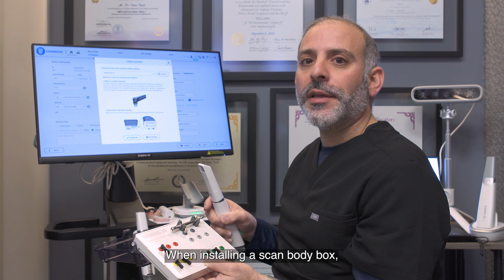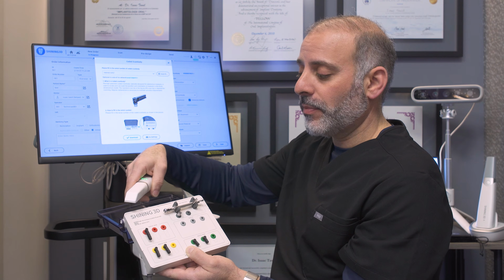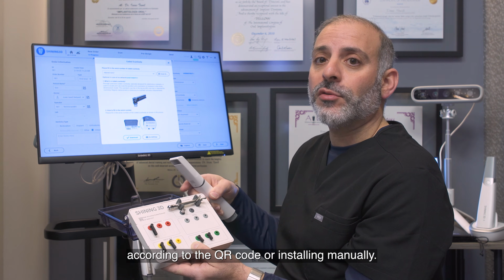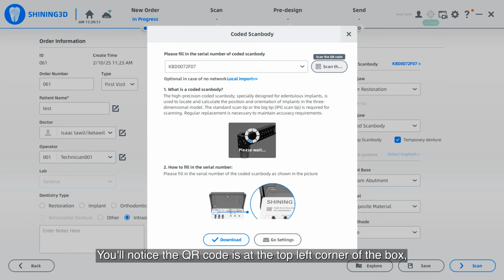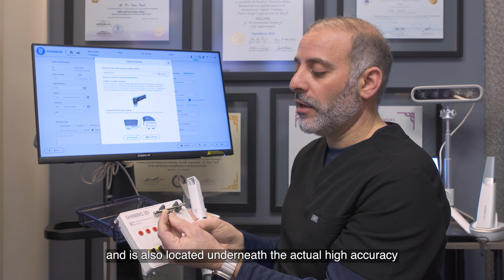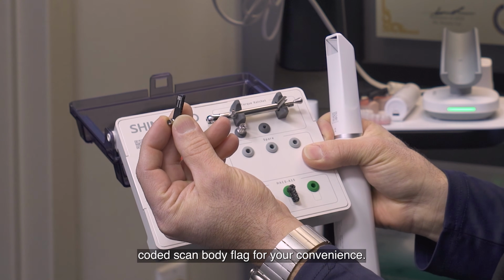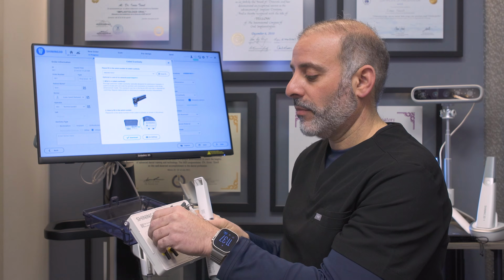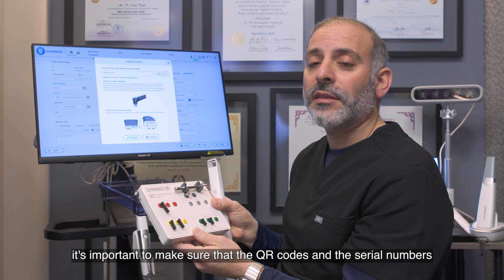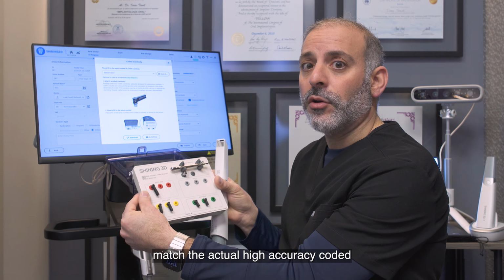So whether manual or automatic, our software is now able to dictate how much of that overlapping is accurate or inaccurate. When installing a Scanbody box, we have the ability to scan the QR code and have the computer recognize the kit according to the QR code, or install manually. You'll notice the QR code is at the top left corner of the box, and it is also located underneath the actual high accuracy coded Scanbody flag for your convenience. If multiple boxes are being sterilized, it's important to make sure that the QR codes and the serial numbers match the actual high accuracy coded Scanbody kit.